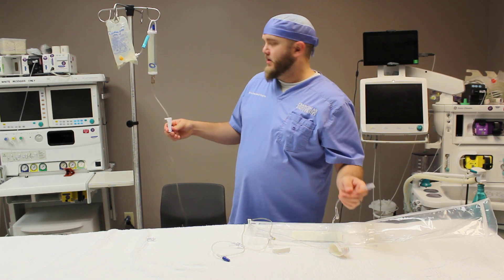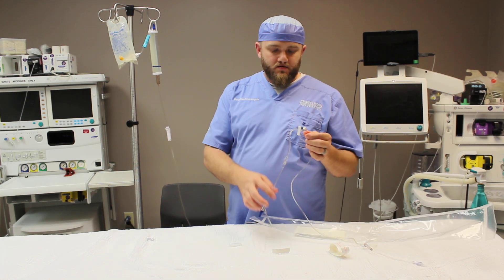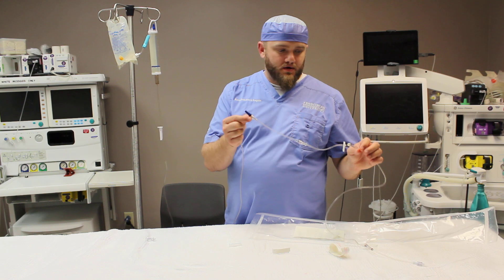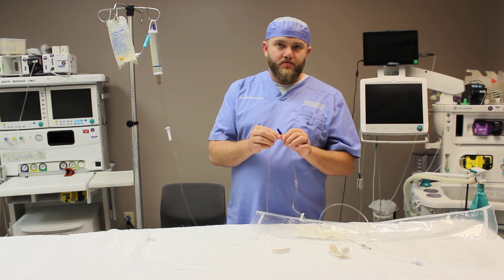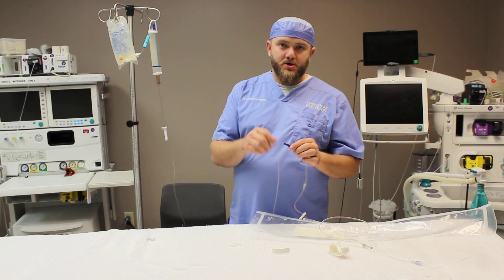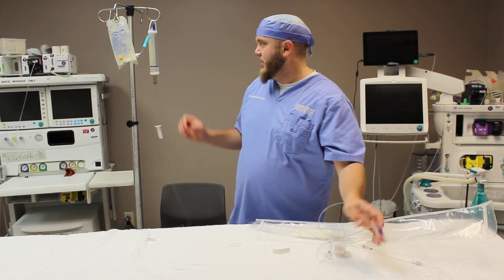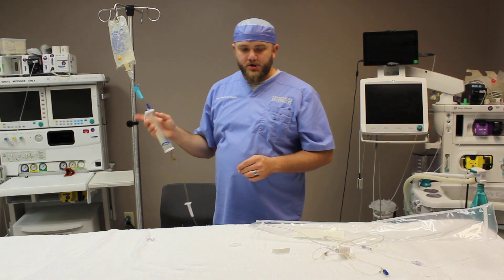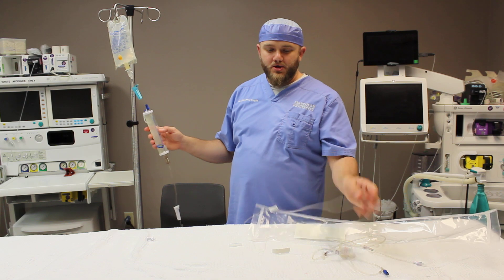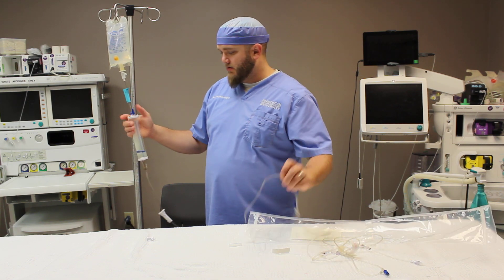We'll clamp that off. Now with the regulating clamp closed, we check each needle port and luer lock adapter. There is some air in there, but you'll want to connect a syringe and ensure that each port is free of any air. At this point, you'll do your fluid calculations for your patient, get your hourly fluid volume, and we'll set up from there.